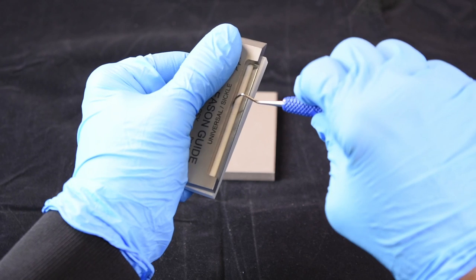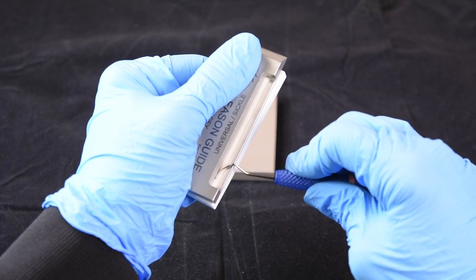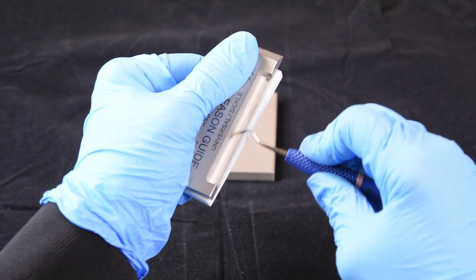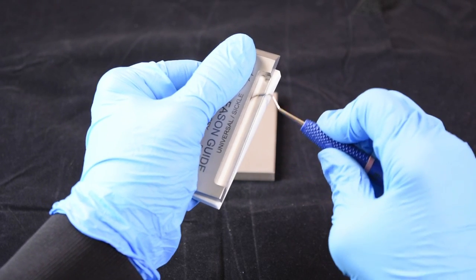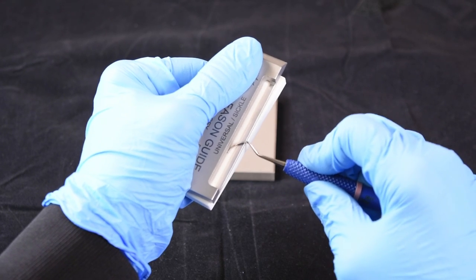Flip the blade over, stop, rest, and glide. Then a pendulum motion, doing the heel, now the toe.